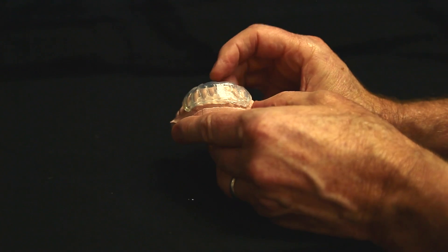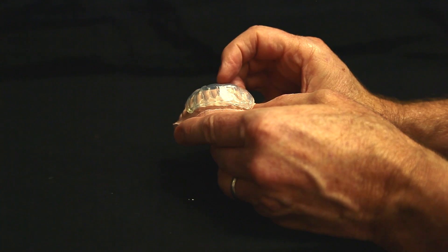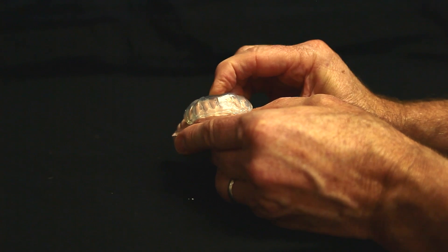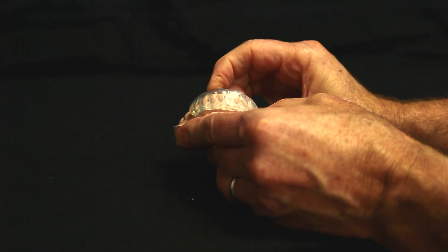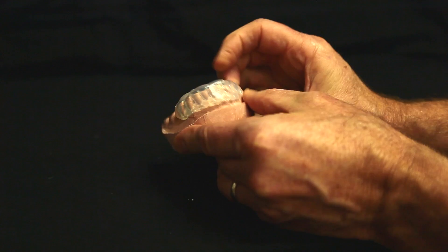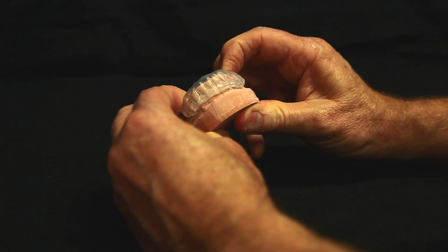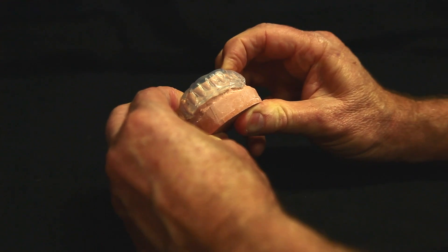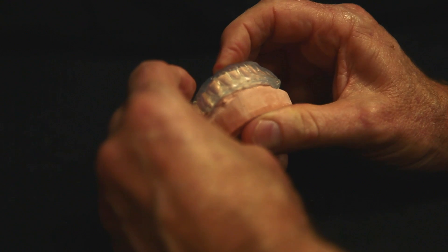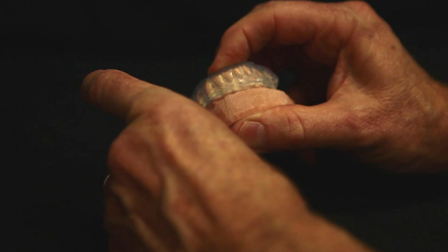And if you notice, there's quite a bit of wax addition. And if I press on this material, it distorts. So on the posteriors, there's adequate stops to keep it from doing that. On the anterior, I can really distort that.